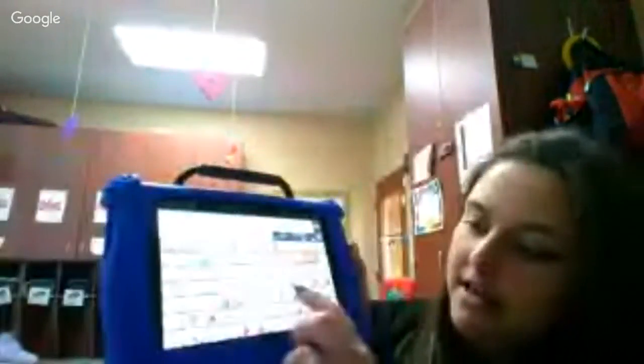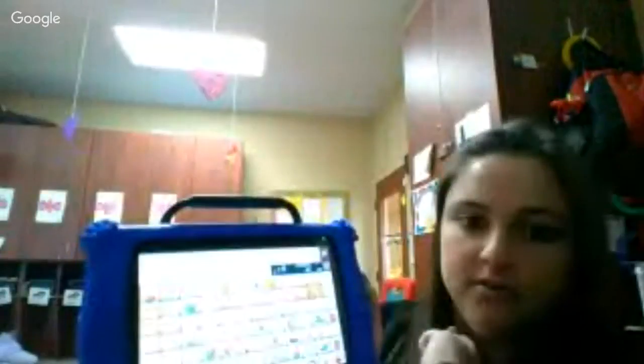He currently uses I want as his main kind of sentence starter. So he'll say, I want, and then he'll pick juice. I want juice. And make his sentence, and it's displayed up here at the top. He uses it to comment by saying that something's cold or something's loud. He uses it to answer questions by labeling items, things like that.